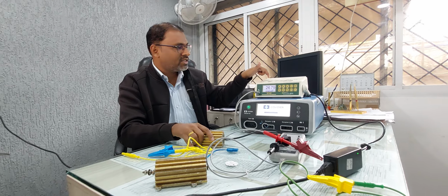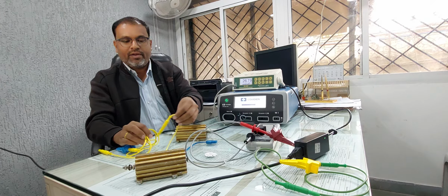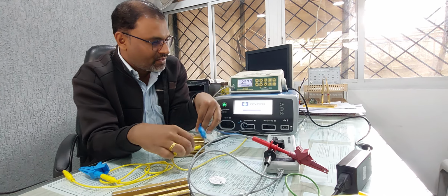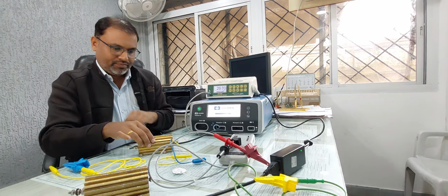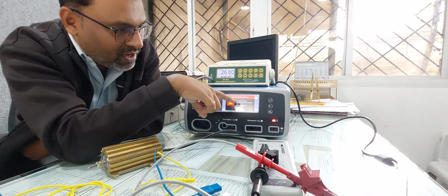So its value should be the same, right? For the monopolar calibration, a patient plate is required, so manually we just have to short the probe, right? And we have to make adjustments for that. These two terminals are for connections. Now see, the patient plate is not connected, that's why the alarm is there.